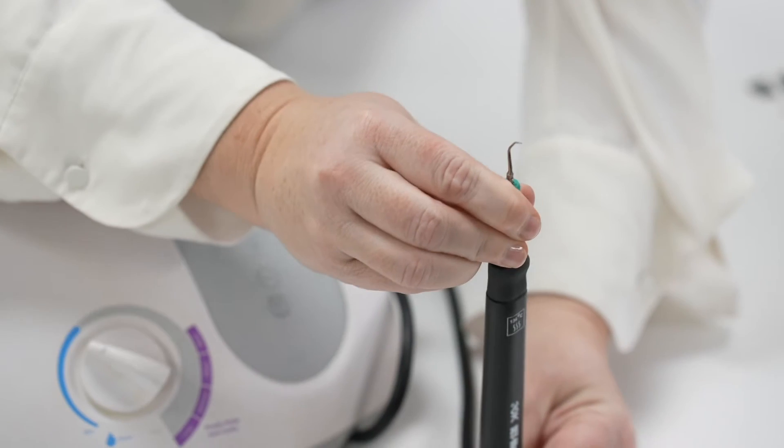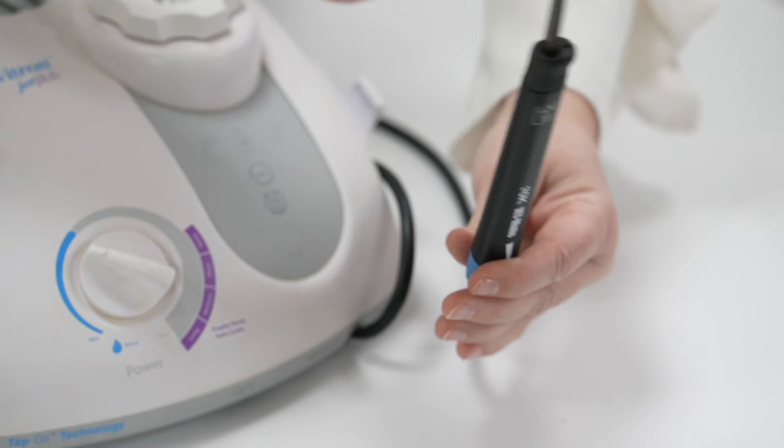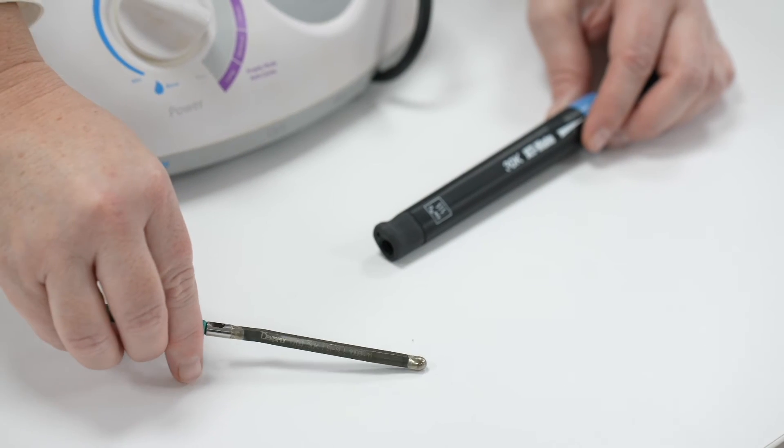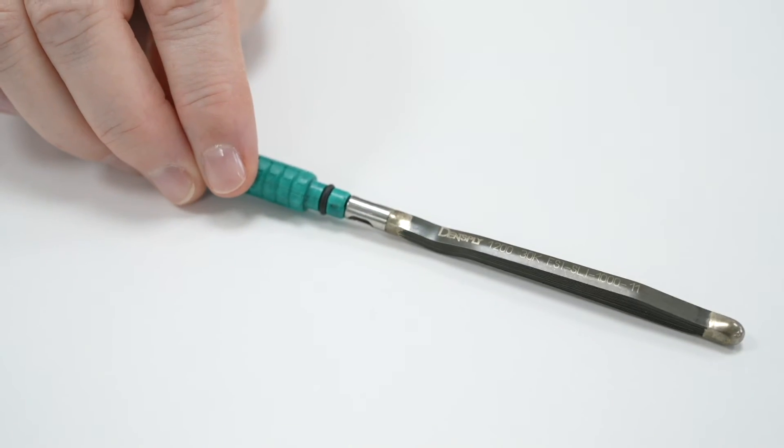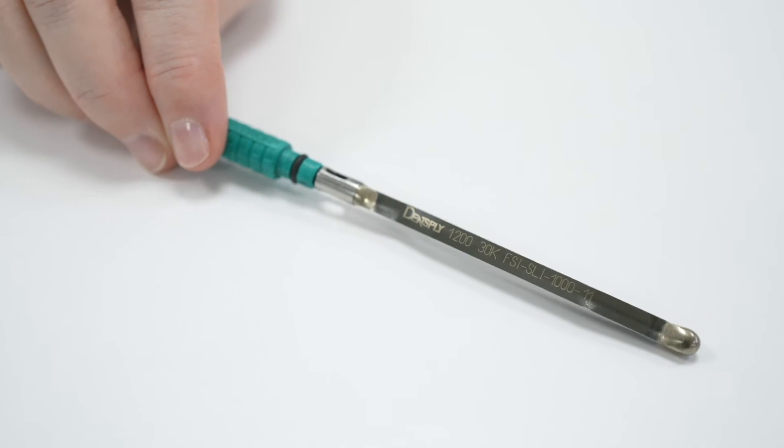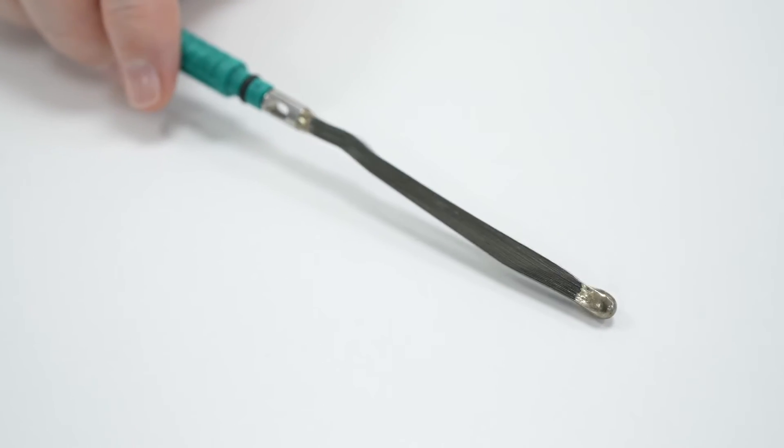If an insert is not cavitating, check that the insert stacks look ok and replace if they are warped or bent. If it still does not work, change the JetMate and make sure there is enough water in the water bottle.